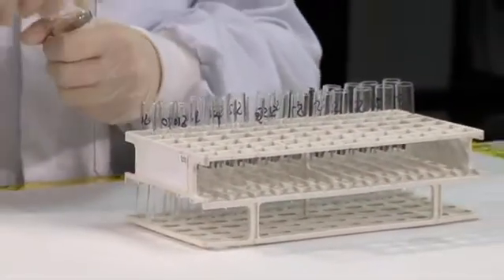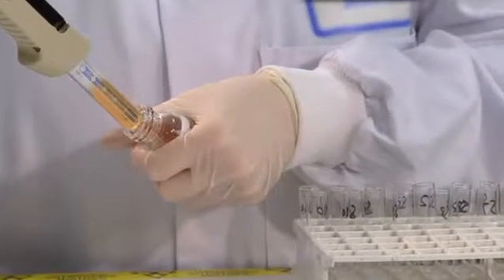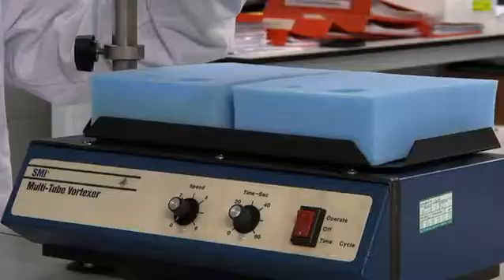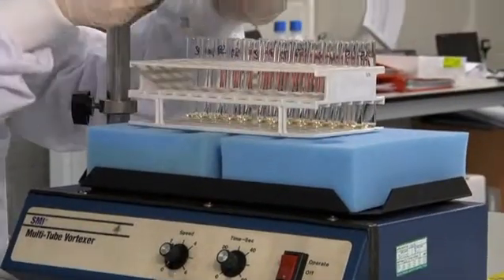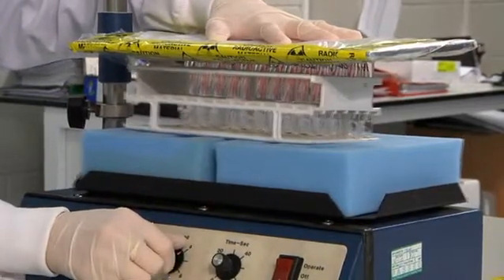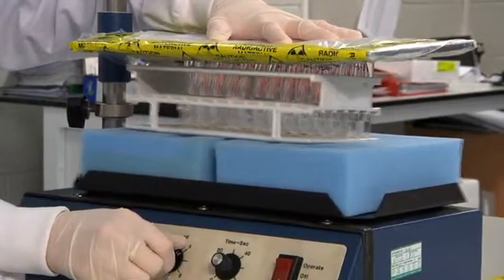Step 12: Add 100 microliters of assay buffer to each tube and vortex to dissolve the residues. Do this immediately as the 125-dihydroxy vitamin D may oxidize if left exposed to oxygen. The immunopurified samples are now ready for assay.